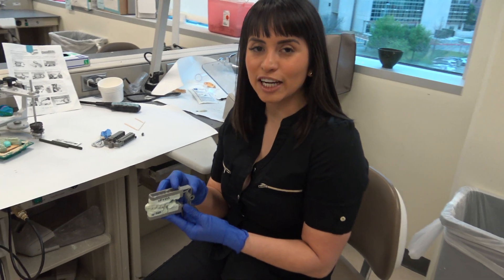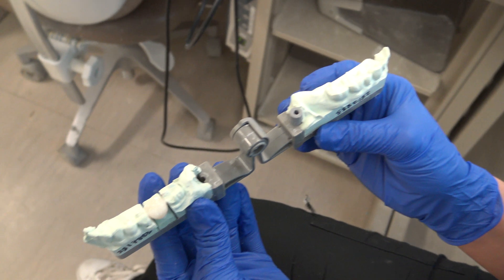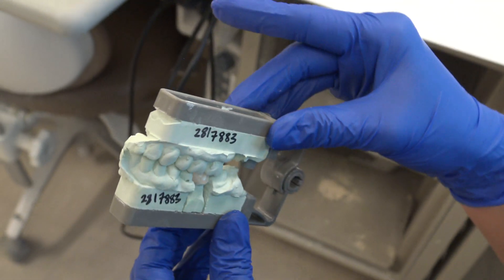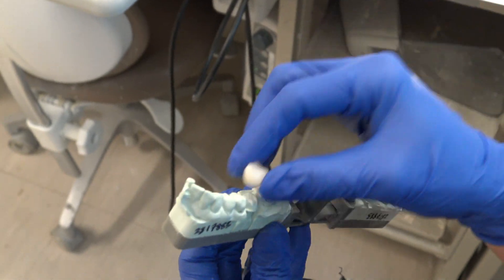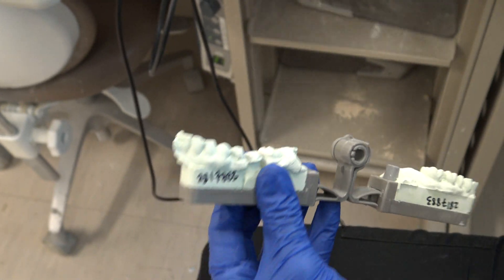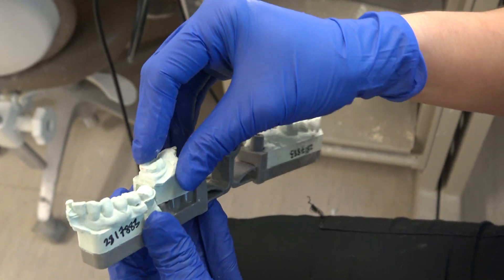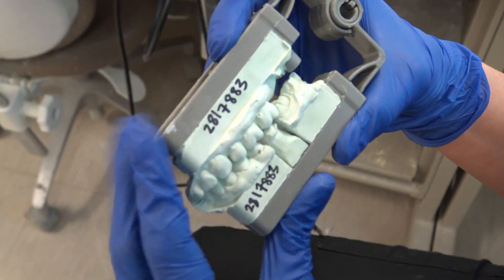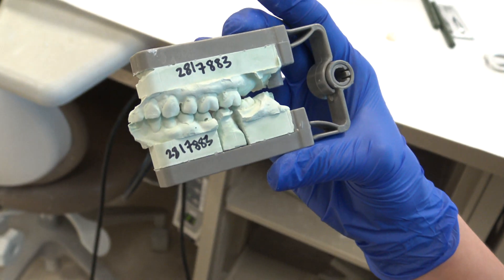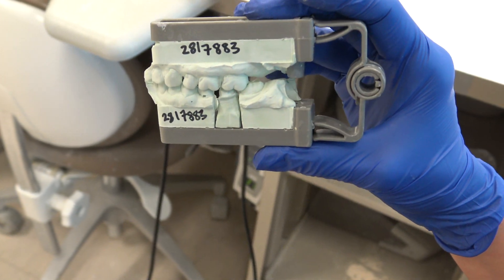This is an excellent example of what a final product will look like. It will allow you to create the perfect ideal occlusion, and you'll be able to create a crown where each component of the die comes out very easily. It really simplifies the entire process — here they have opposing contacts and a distal stop, so the additional pin is not necessarily utilized.